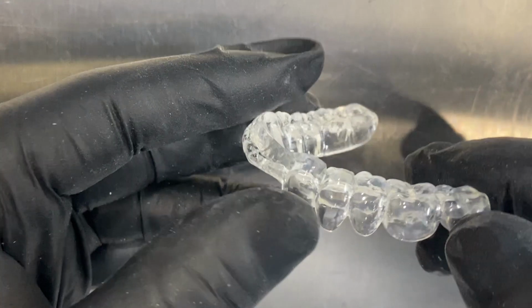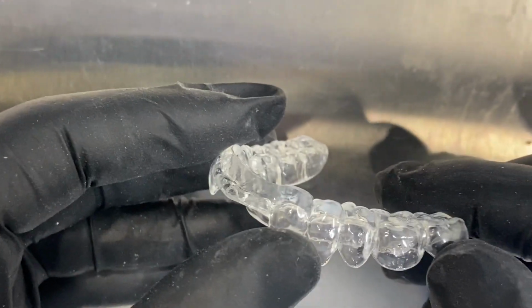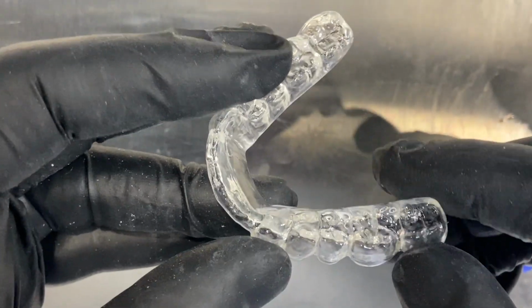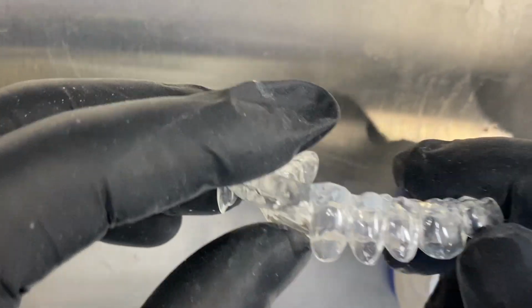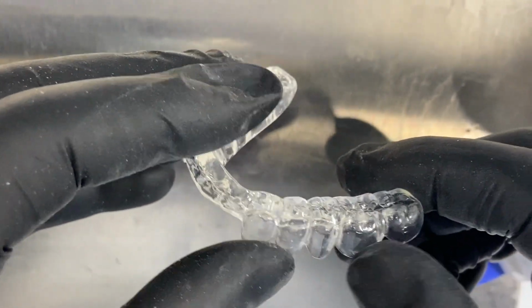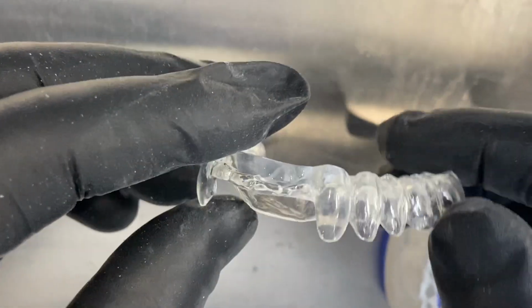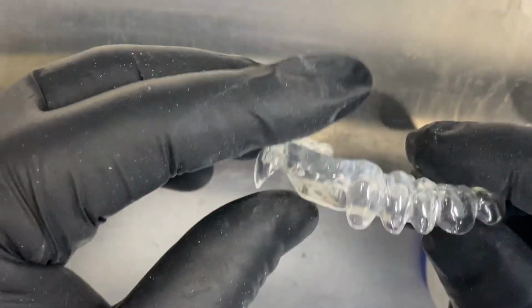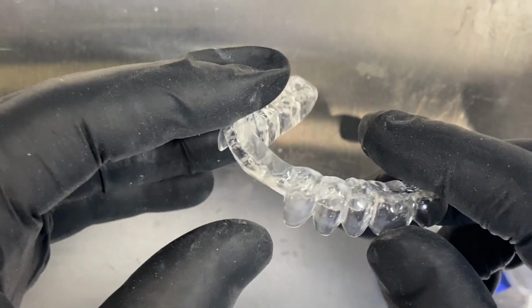This is industrial PMMA that is compressed under tons of pressure and in perfect conditions to be able to make big discs and be able to mill these appliances. So the density is higher, it doesn't stain, they're really more compact, but that doesn't make it stronger. Remember that the stronger a product is, the less flexibility it has, and then it will eventually become more fragile.